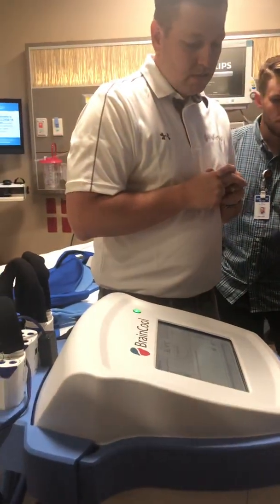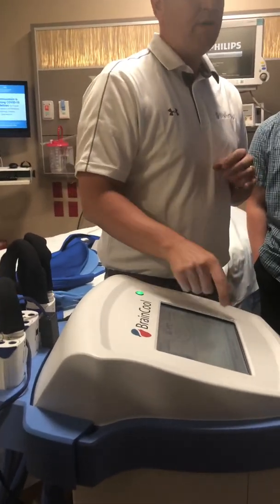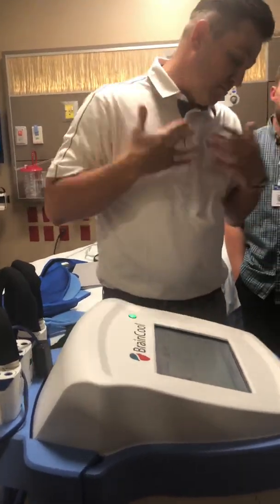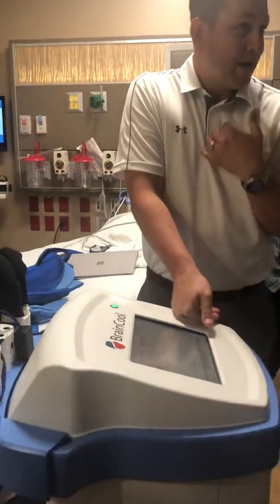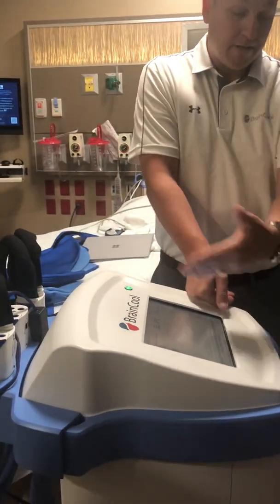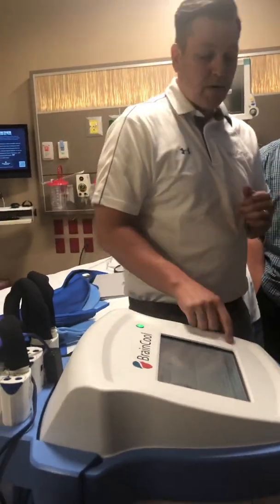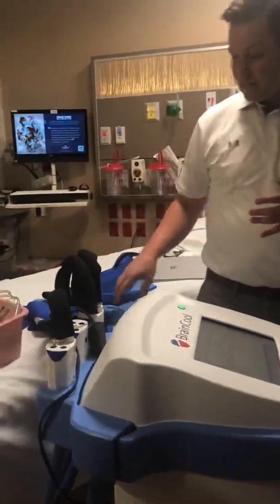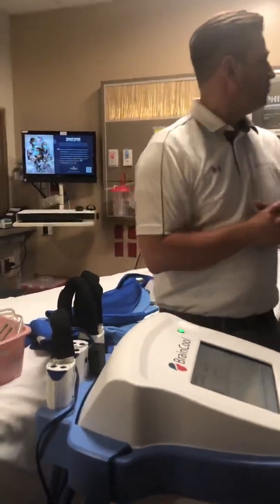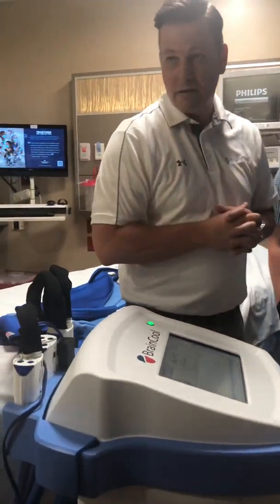If you want to pause it, take them on a field trip, you press the pause button and say yes. The reason we put that extra step in there is so it doesn't get touched accidentally. I don't love the placement of that, so I said you need to put another step on there. So that's what we did. That's why that's there, and then you'll press play when you come back. And you're just going to disconnect and go. So you just leave the machine up here, and it can just stay on and stay paused in the corner until you get back.